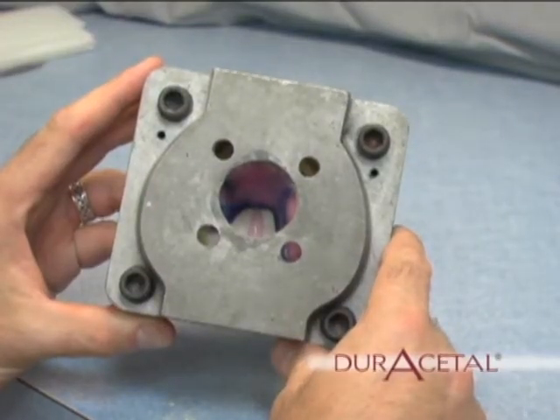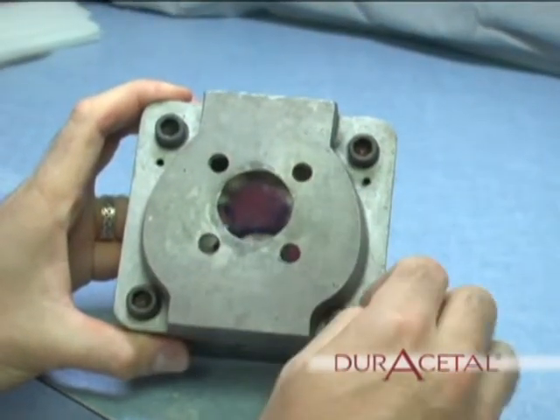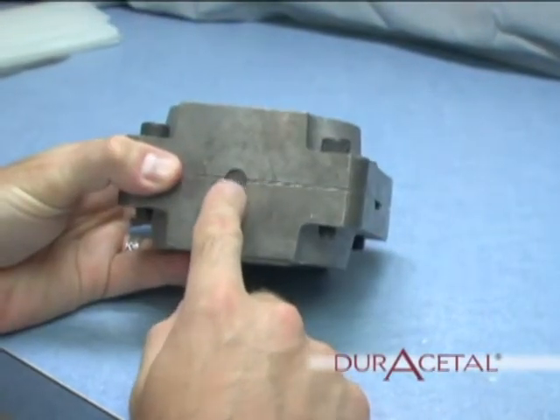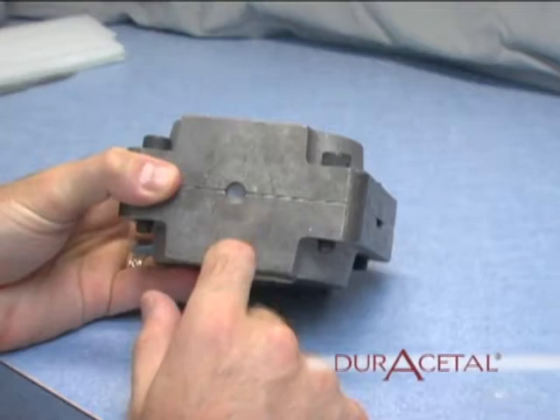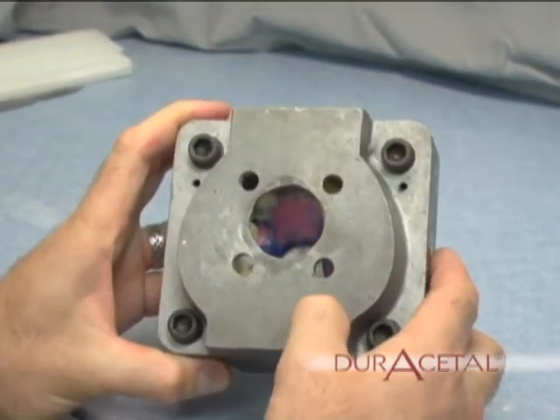Finishing the investing process. Place a stone separator on the lower half of the stone that is already invested. Put the upper and lower half together and screw the bolts in place. Notice the bullet-shaped piece of wax now fills the channel. This will keep the stone from leaking.